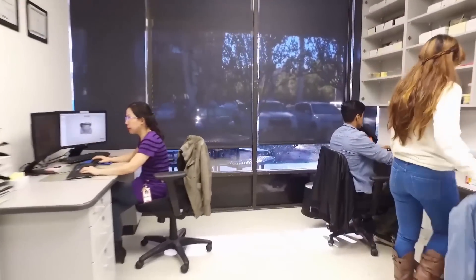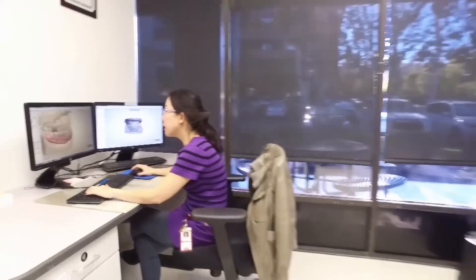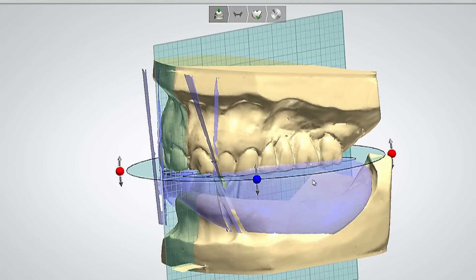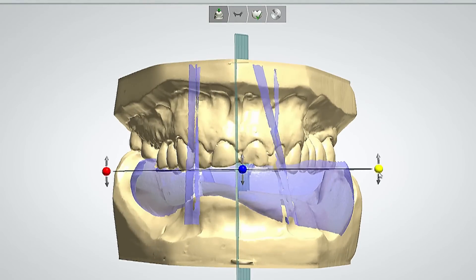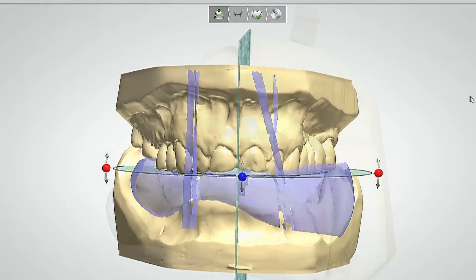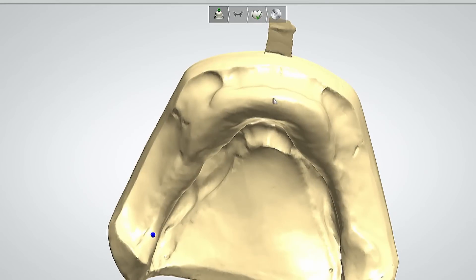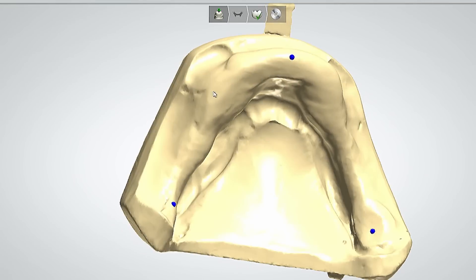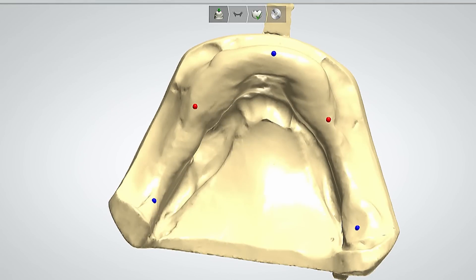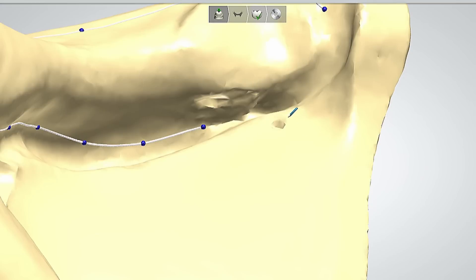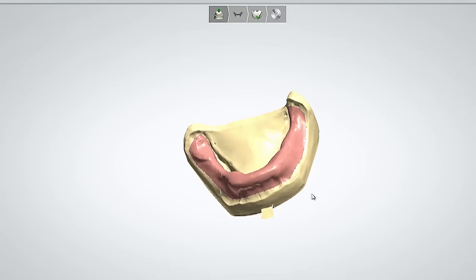Let's take a look at the digital design of this week's case of the week — the mandibular immediate denture. My technician has already scanned the maxillary arch and the mandibular arch. I had removed the teeth from the cast, so she had to make a bite jig on the articulator to digitize the information. You can digitize the information in many different ways — for example, scanning the impressions themselves or scanning the cast. In this case, the technician scanned the cast.